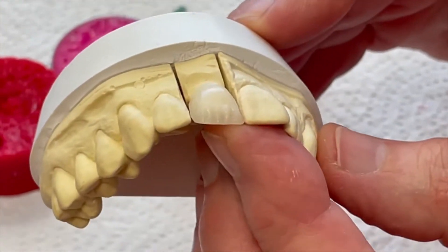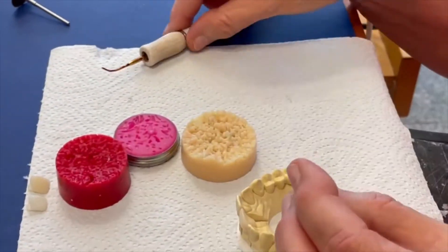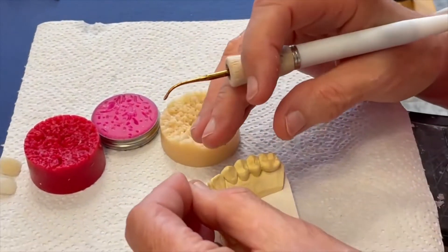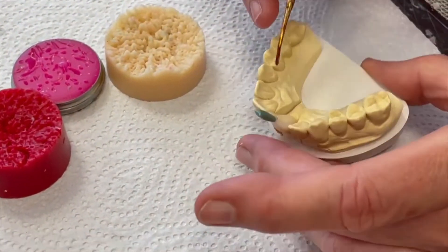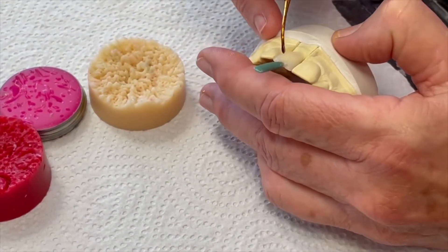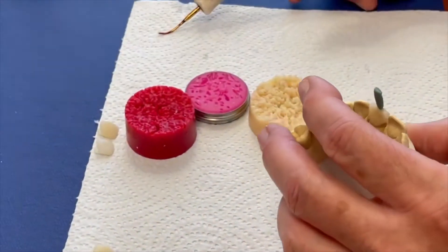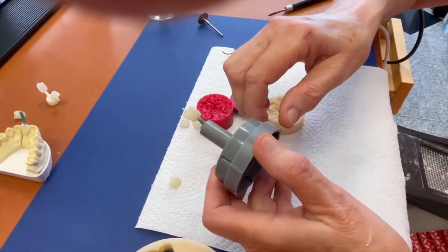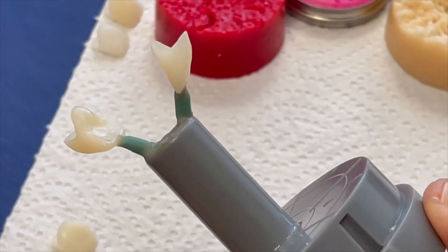The crown is in wax at the moment. Now we go ahead. The step will be the same as yesterday: we take a little bit of stick-on wax, fix the stick-on wax on the sprue wax, and set the sprue wax on our wax crown, fill it a little bit and fix it better. Now, as you can see, we prepare it once again — a little bit faster. On the muffle you can see this is a cutback crown.